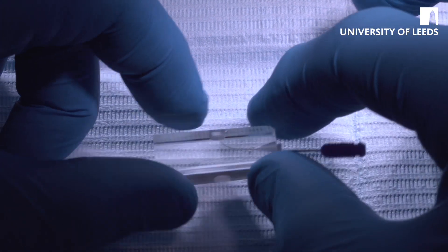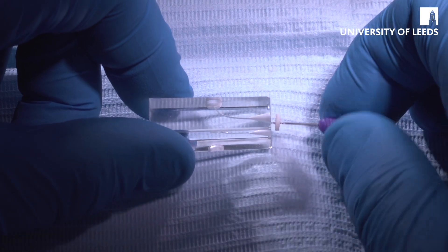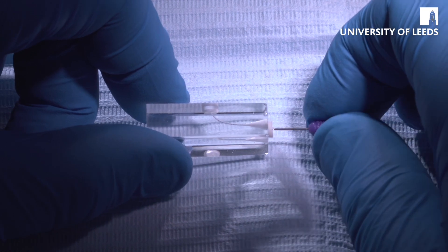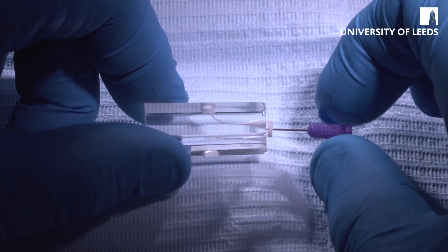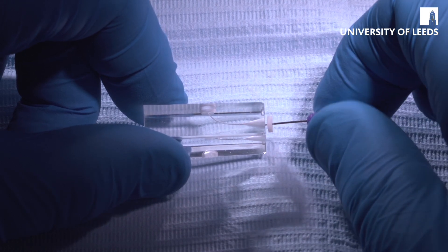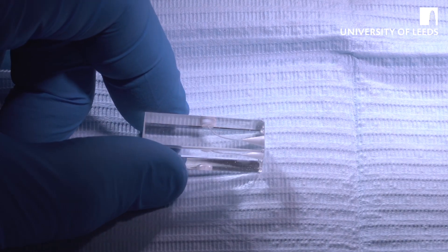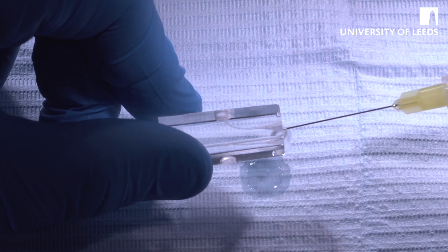That's going to about two-thirds of the length of the canal. Then we're going to use a watch-winding motion and work this until it's loose, until it goes in to the same length, and as you work it, it's going to go further apically. Come out, put it into the sponge, clean it out. It's critical when you're using endo-view blocks that you irrigate between steps, because debris will very easily cause blockages.